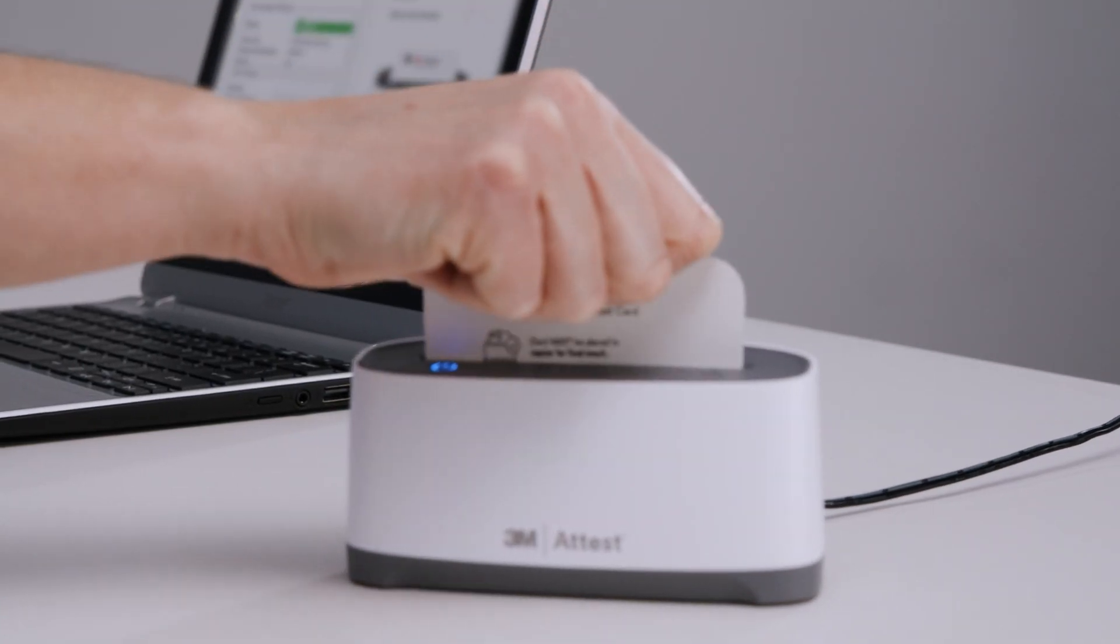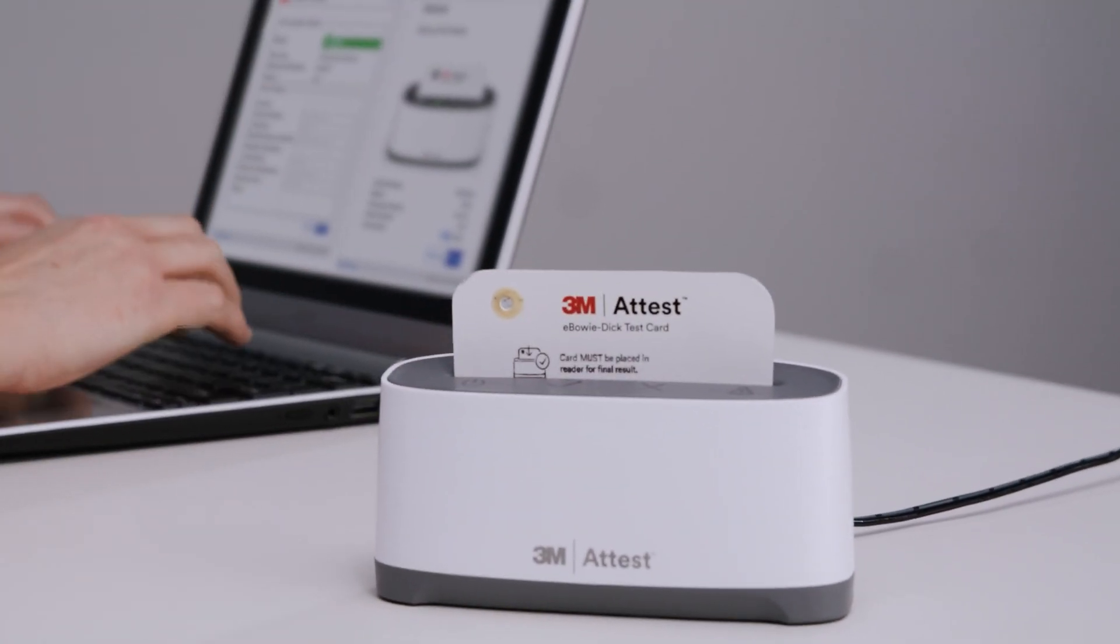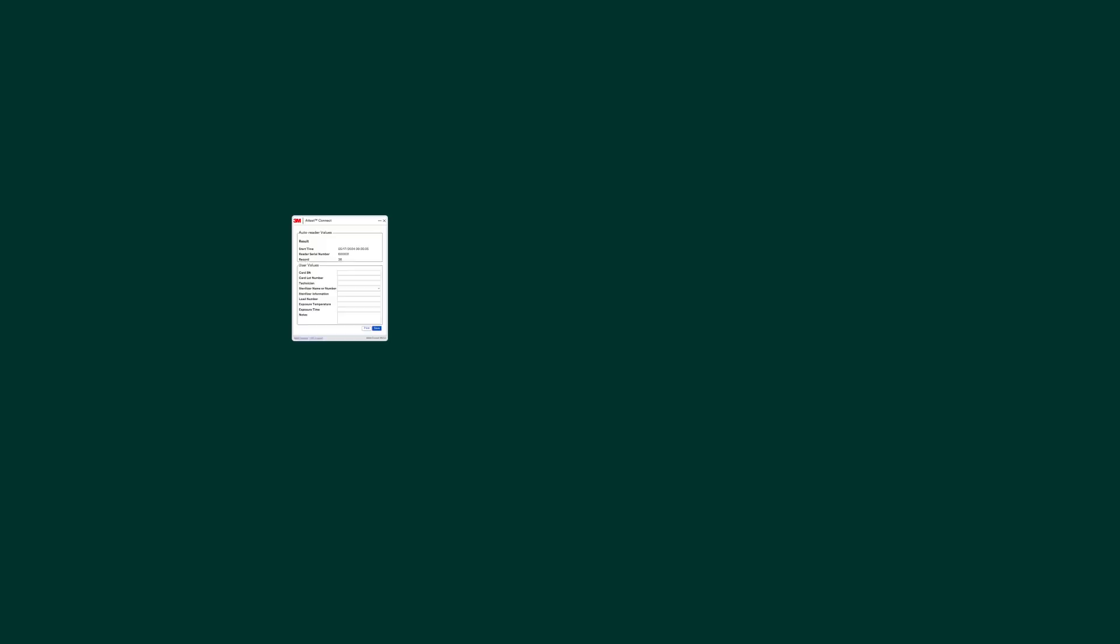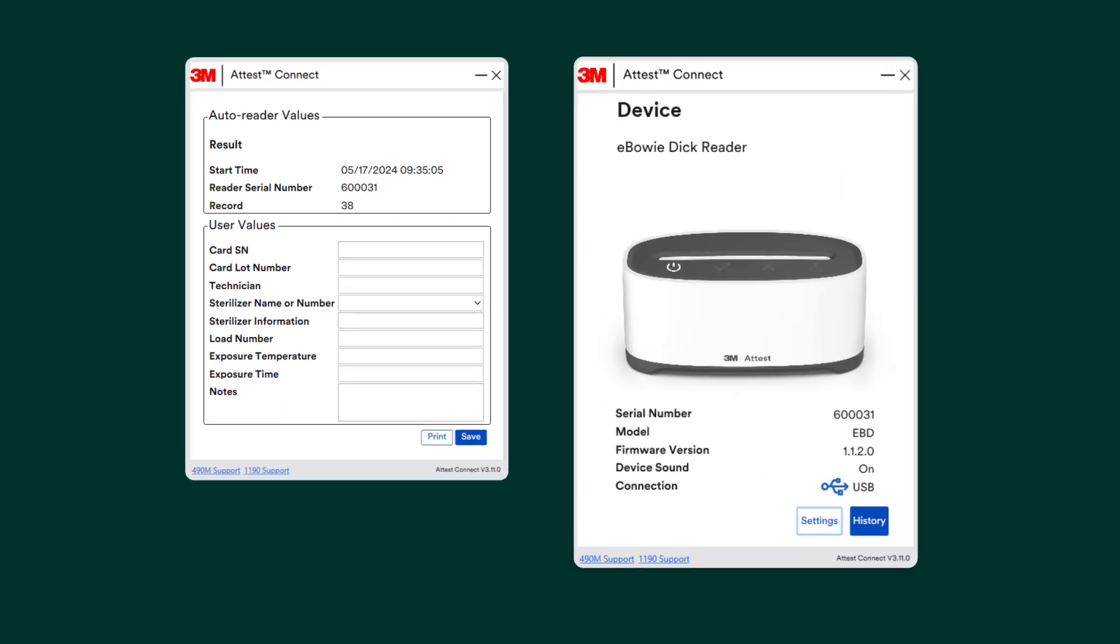Now you're ready to insert the card into the auto-reader. Your on-screen view will mirror the test card in real life as you insert it into your auto-reader. You'll see the auto-reader results and it will automatically load the test card results at the top of the Details page.